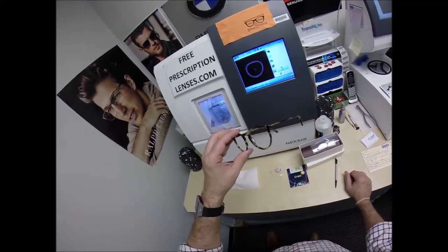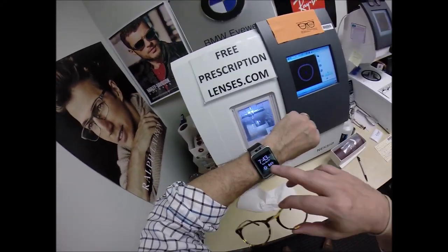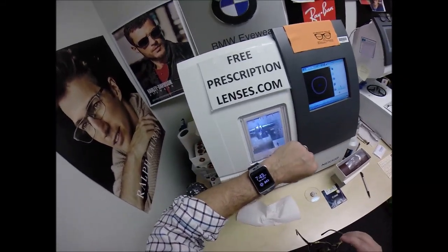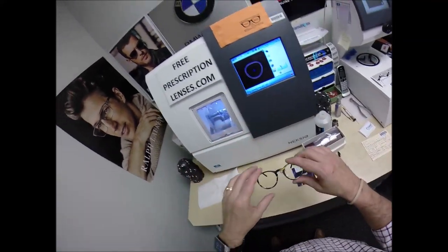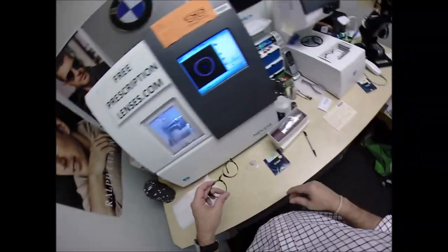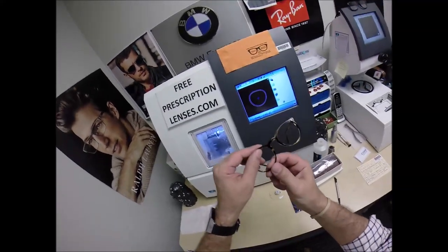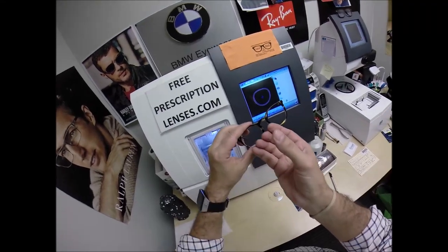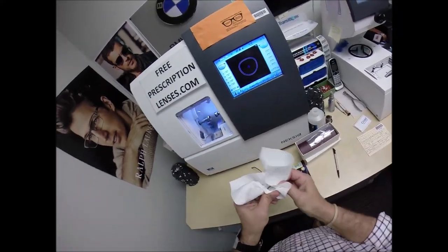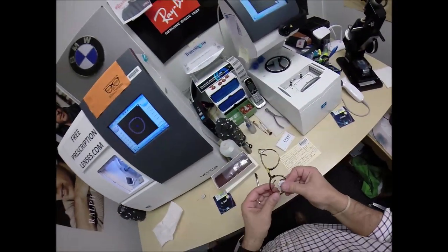I just love the way that sounds — the cold mount. I don't want to use heat because it would cause the frame to stretch a little bit, and over time that would make the frame roll outwards, giving you an ugly cosmetic look as well as shortening the lifespan of the frame. So you want a perfectionist like me cutting your lenses. The right lens takes a little bit longer. Once we get the size just right, we flip it over and cut the left.